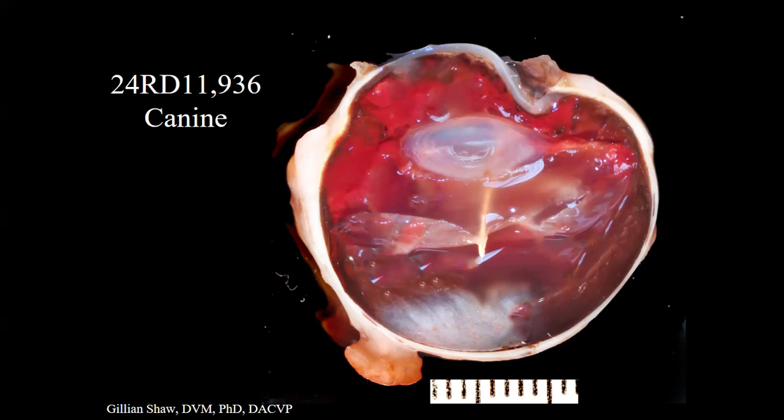The way they worded this made me laugh. So they said suspect trauma to the eye from specialist ultrasound. So I was picturing like a specialist beating this eye with the ultrasound probe. I don't think that's what they actually meant. But anyway, they said enlarged globe, chemosis, and glaucoma. This was also a staff pet. So the good news is that I don't think this was trauma induced by an ultrasound probe wielded by a specialist.